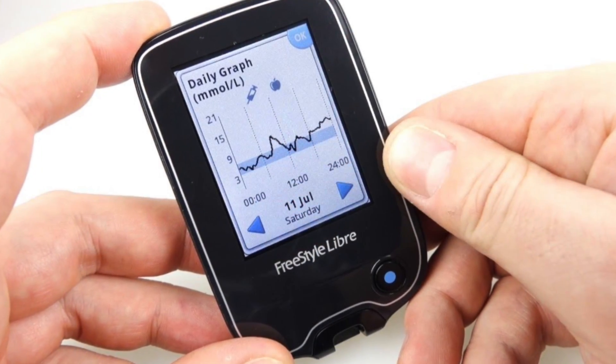This will tell you, for better or for worse, what your glucose is throughout the day. You wear it 24 hours a day and one sensor is good for a 10-day period. Obviously, since this is a diabetes supply, there's some way to extract lots of money from you, and basically it's through the sensor because the sensor has a planned obsolescence. It lasts about 10 days and then you have to throw it away — much like iPhone models or light bulbs. It just expires and you have to get a new one.